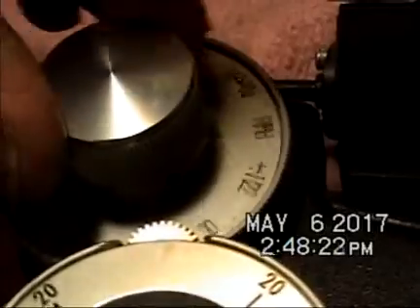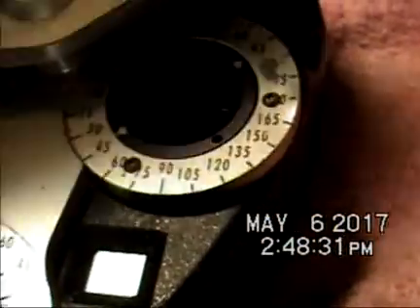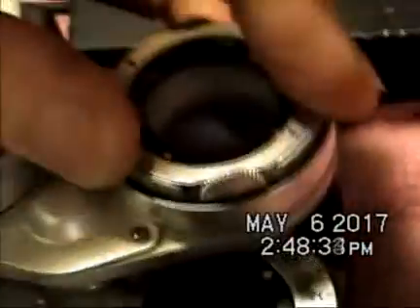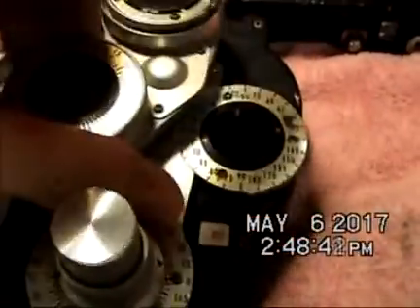This bracket, which attaches to the top of the left bank, was severed. Something is rolling around inside the right bank as well, and this is out of alignment. So it's in bad need of cleaning and who knows what else — frozen JCC mechanisms that have to be cleaned as well. It's turning the axis as we're turning this.